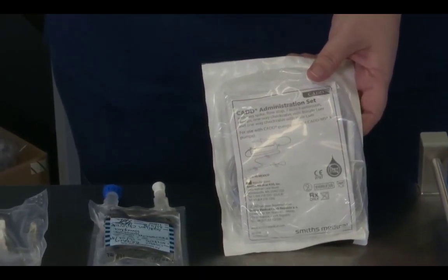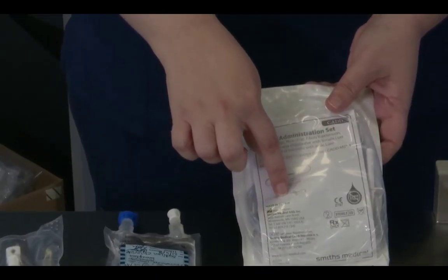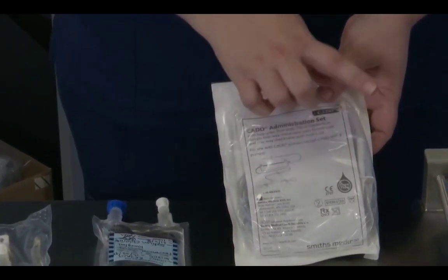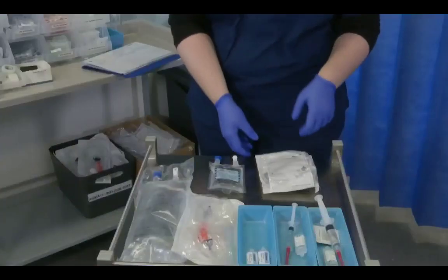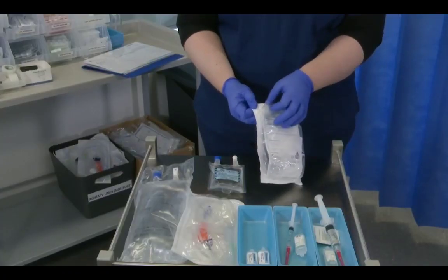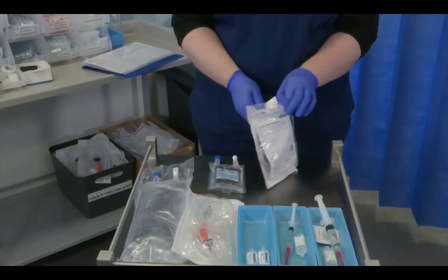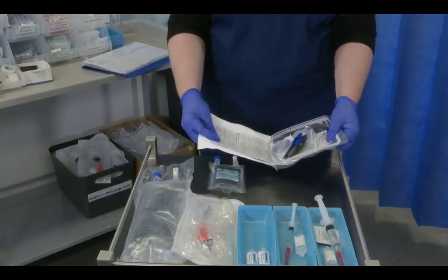As soon as we attach the IV line to this and press start, if we don't prime it, we will push this air into the line and then into the patient, which we don't want to do. So I'm going to don some gloves after performing hand hygiene, and I'm going to open my administration set. These administration sets always come wrapped in their own flyer, so you'll find it inside of the flyer.